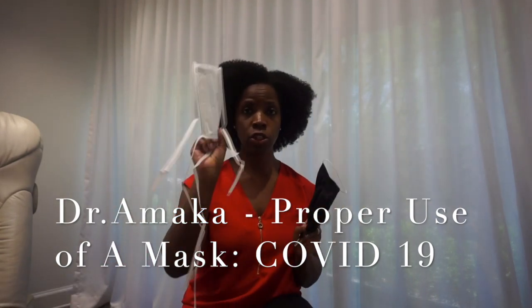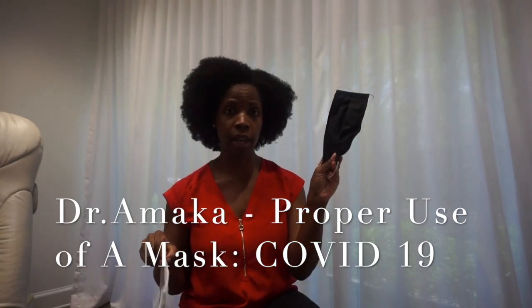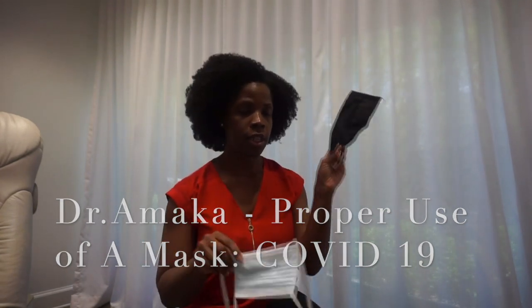These are two different masks. This is a surgical mask and this is a cloth mask — I have a filter inside of it. This cloth mask also demonstrates a type that has the ear bands on it. There's a certain part of the mask that goes against the mouth and one part that faces the environment.